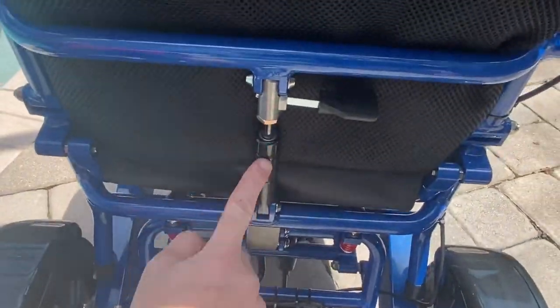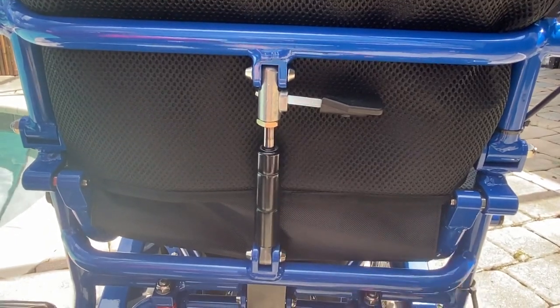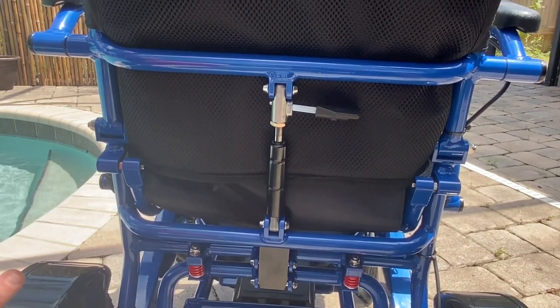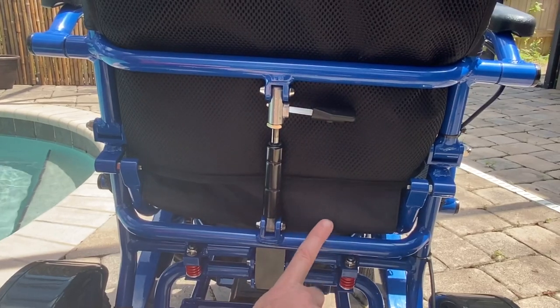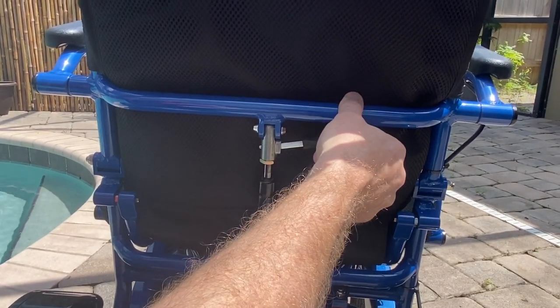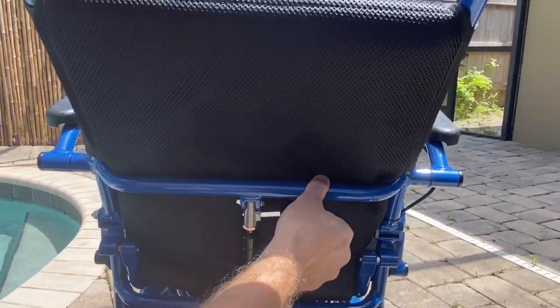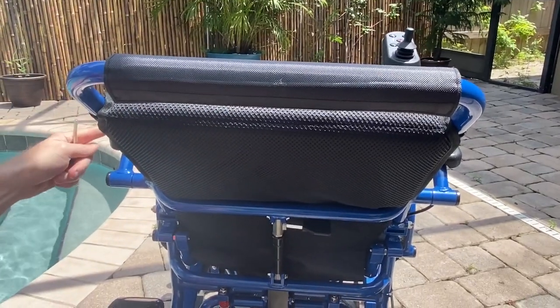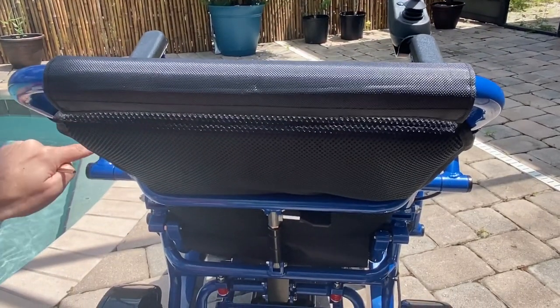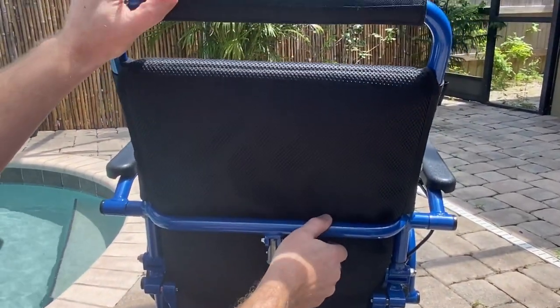There's the infinite reclining mechanism. Some chairs that recline not only don't hold up to 400 pounds like this chair does, they're also not FDA approved — this chair is an FDA medical device. They don't have the ability to give you an infinite amount of reclining positions. Not only that, the armrests on those chairs are not ergonomic; they typically lay flat, putting additional strain on a person's lower back, shoulders, and neck, even with a headrest in some cases.